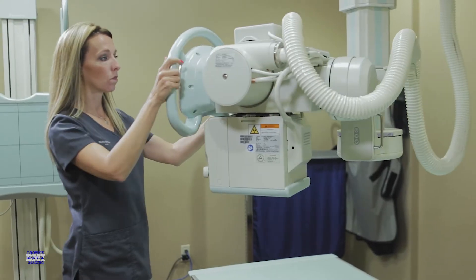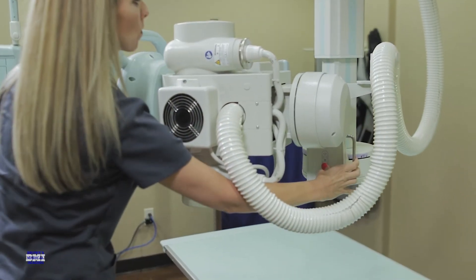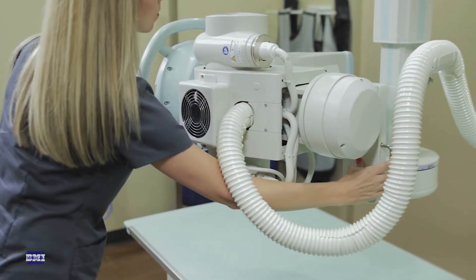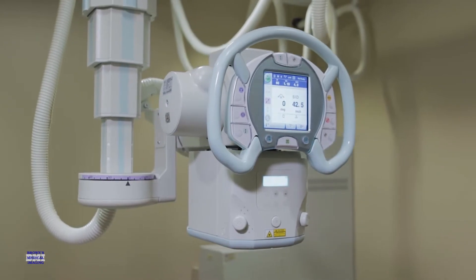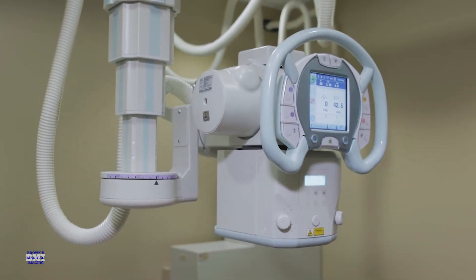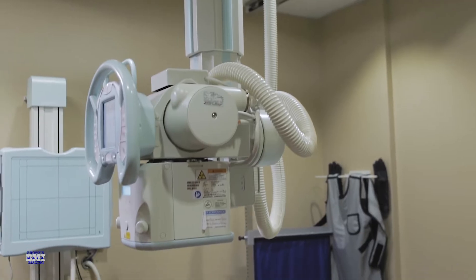The rear-mounted switches, located on the back of the overhead tube, allow for vertical access and rotation in any direction. With the addition of the collimator light switch, these extra buttons ensure the versatility needed to complete any emergency exam or cross table work. The next-generation collimator reduces x-ray dose to the patients by automatically switching to the optimal filter for each selected APR, minimizing unnecessary exposure while obtaining high-quality radiographic images.